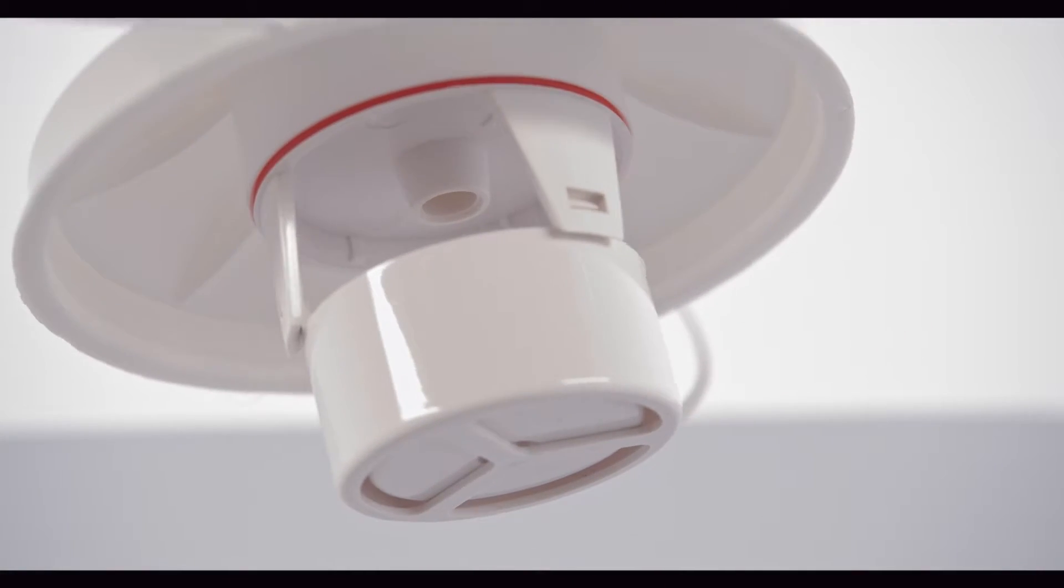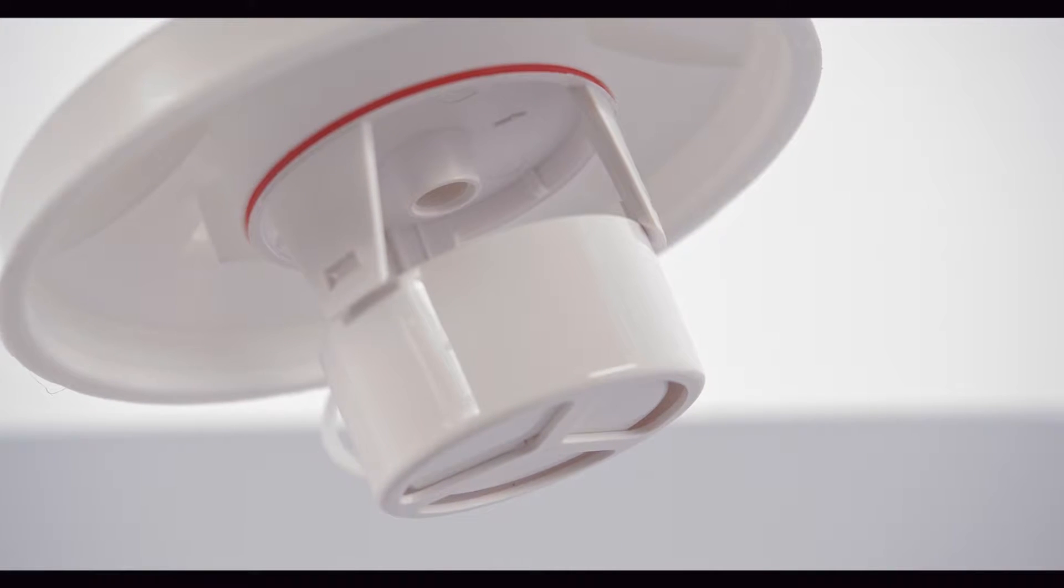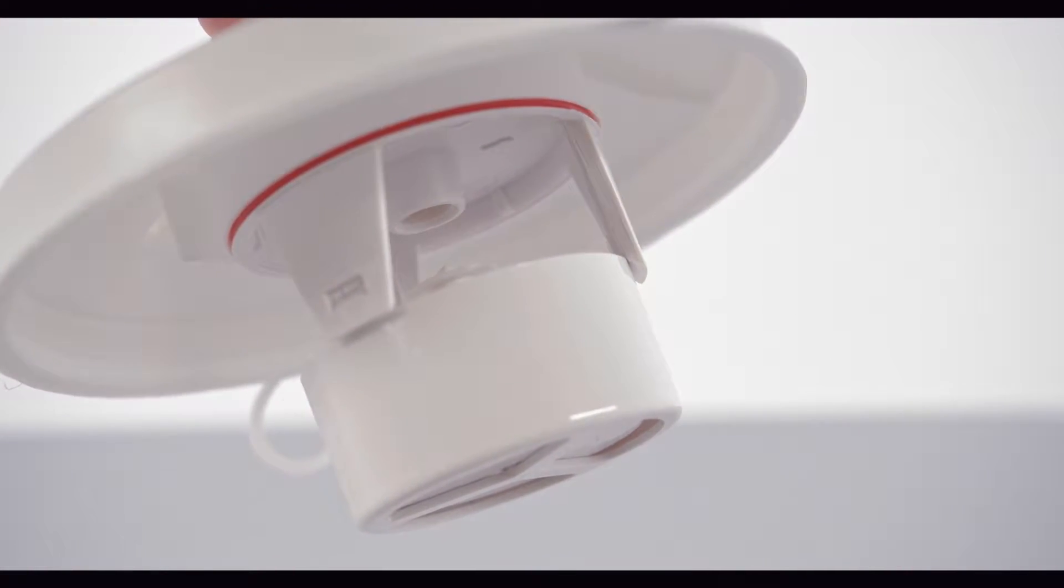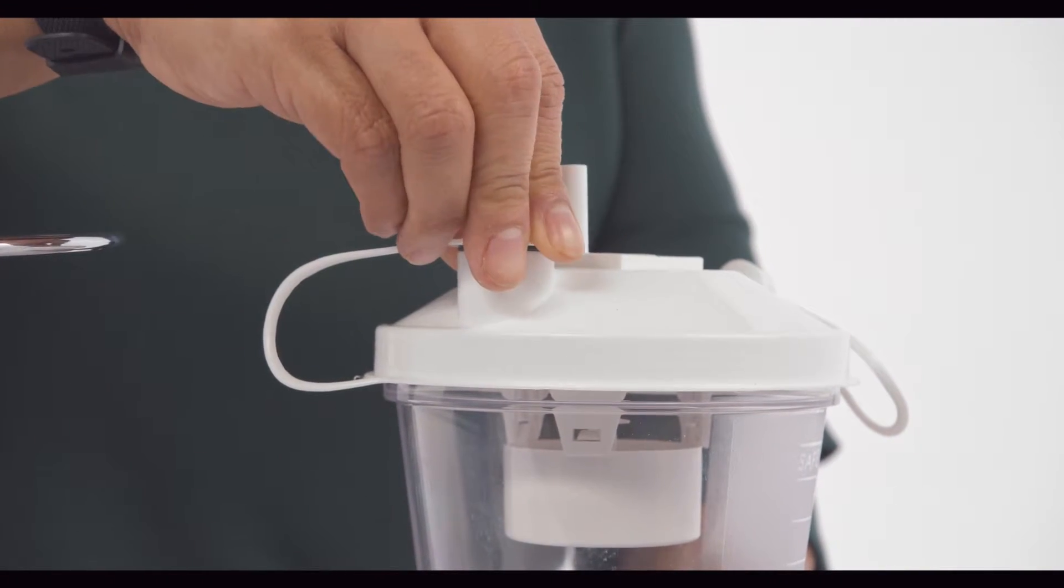The float is a safety mechanism for the aspirator, because should you accidentally let your bottle get too full, it will stop the unit from being able to suction. Make sure to close the hole at the top with the lid top provided.